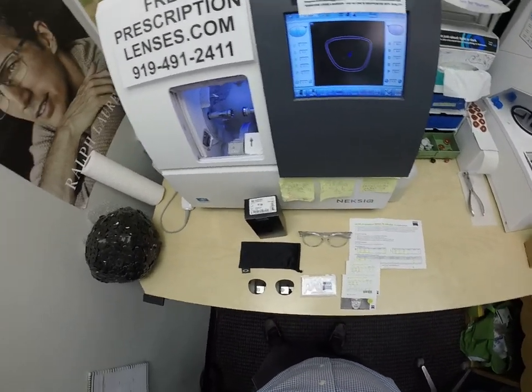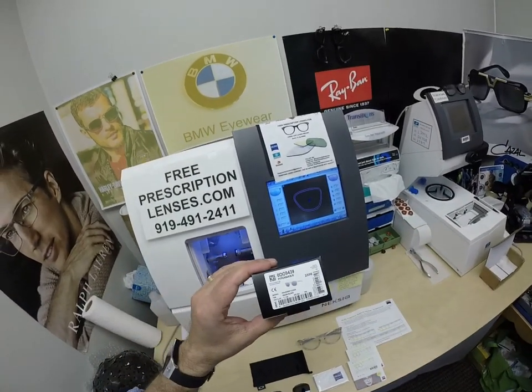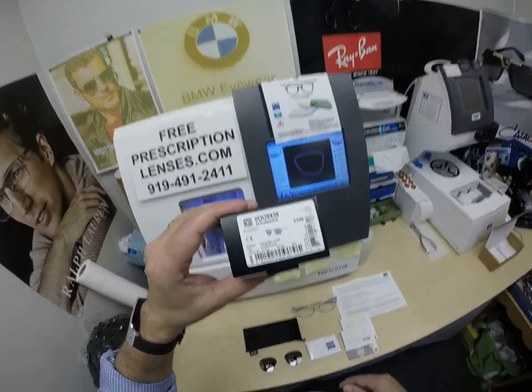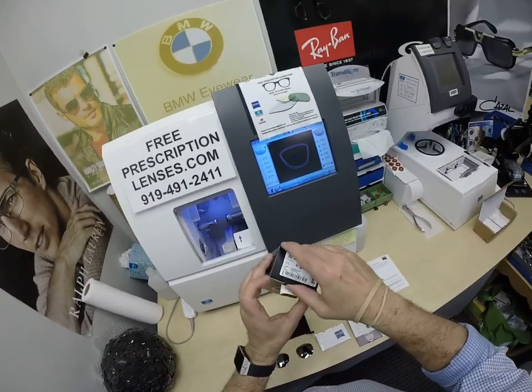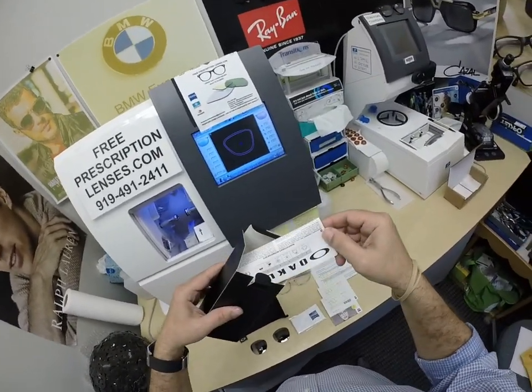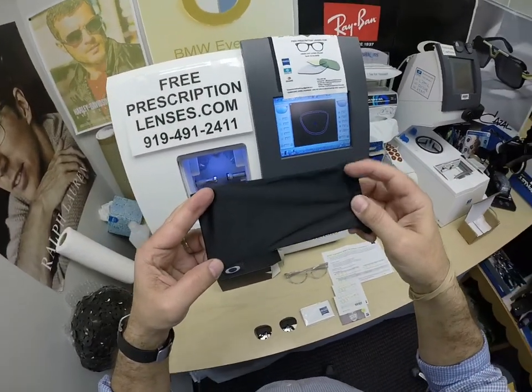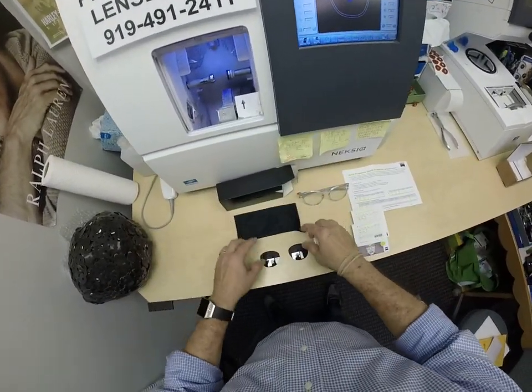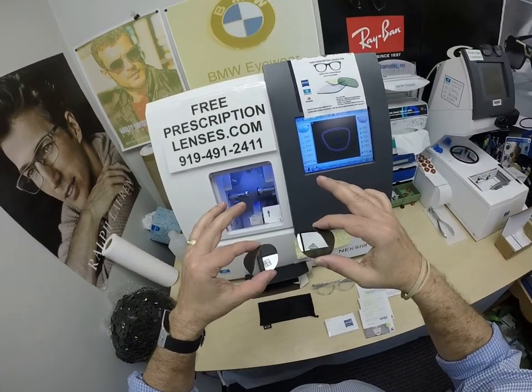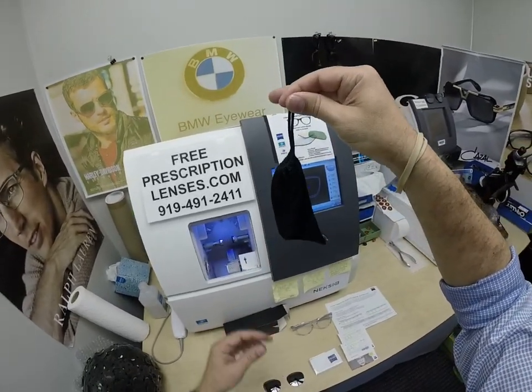When I show you Michael's Oakley 9439 Pitchman R, color 02, the Polish Clear. You can get all the manufacturer's original packaging from Oakley with the Oakley junk mail in multiple languages, the Oakley cleaning cloth. Why is there no hard case? Because this is a sunglass frame. The ophthalmic frames come with a hard case; the sunglasses come with this cleaning cloth that doubles as a carrying bag.